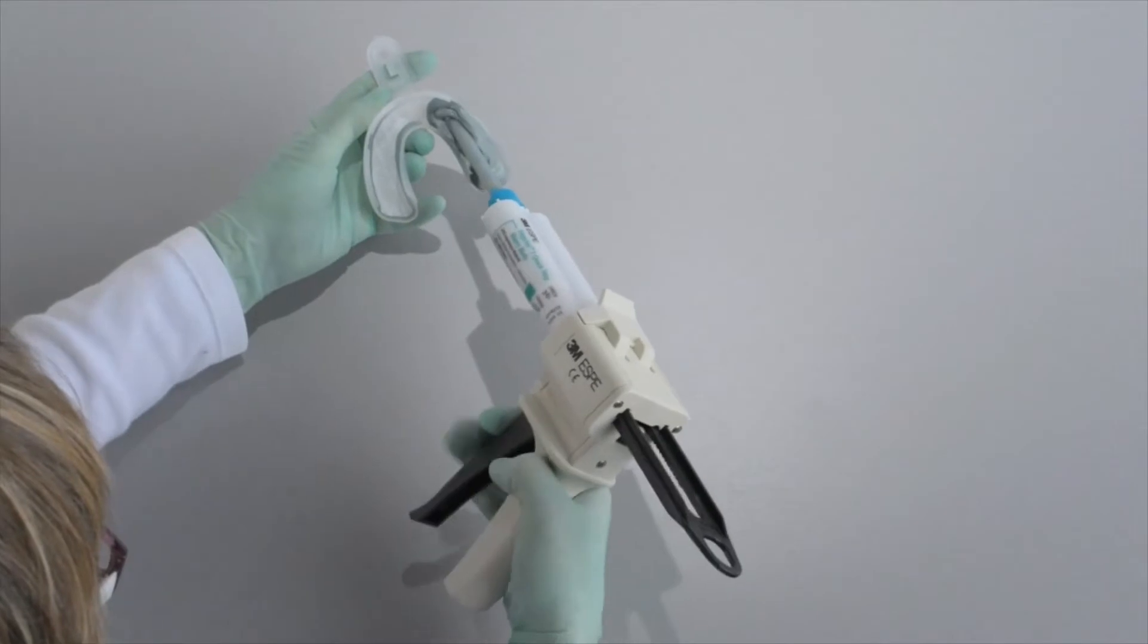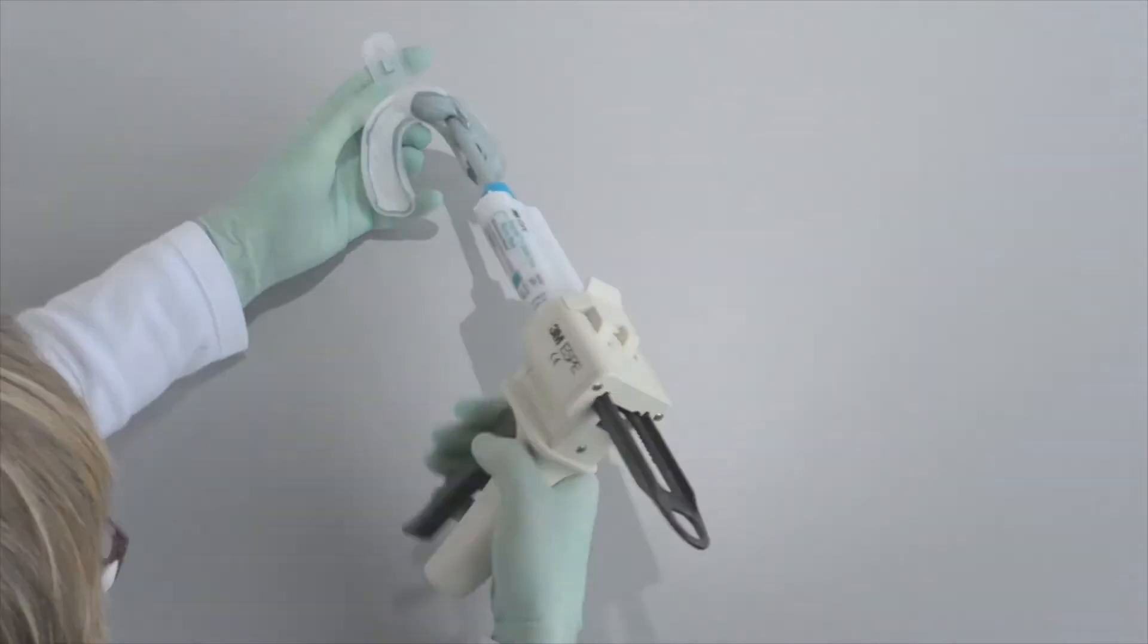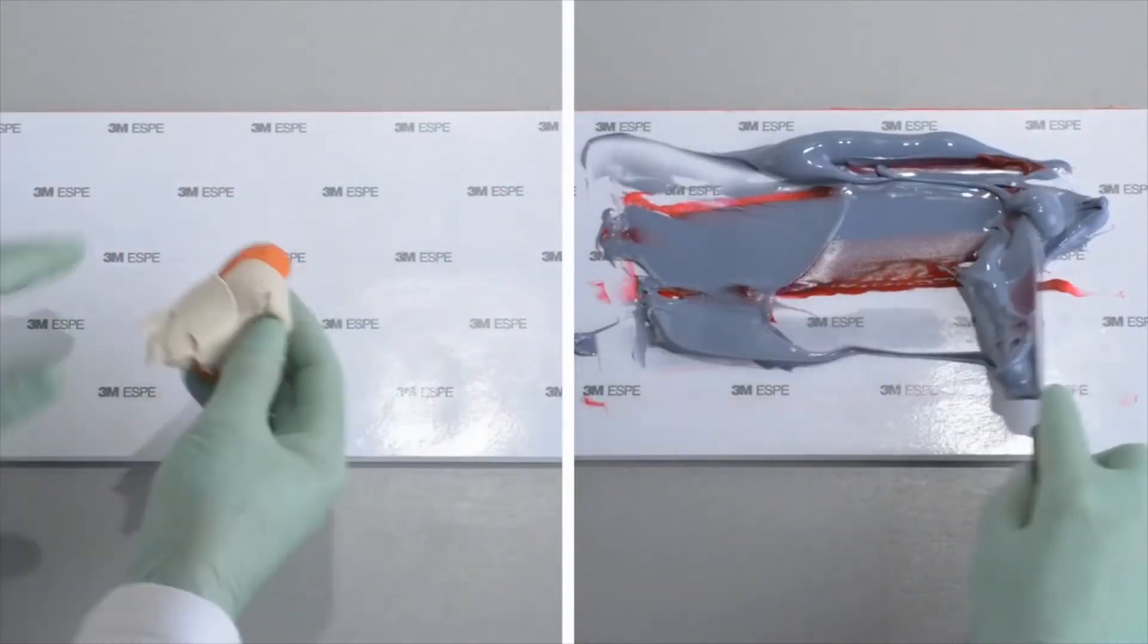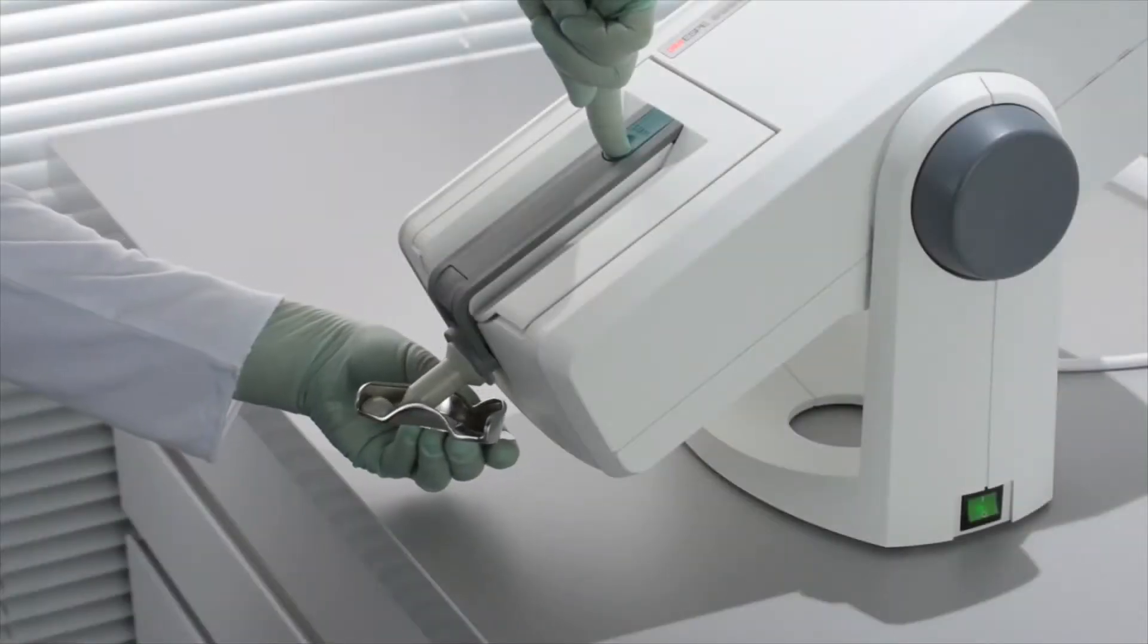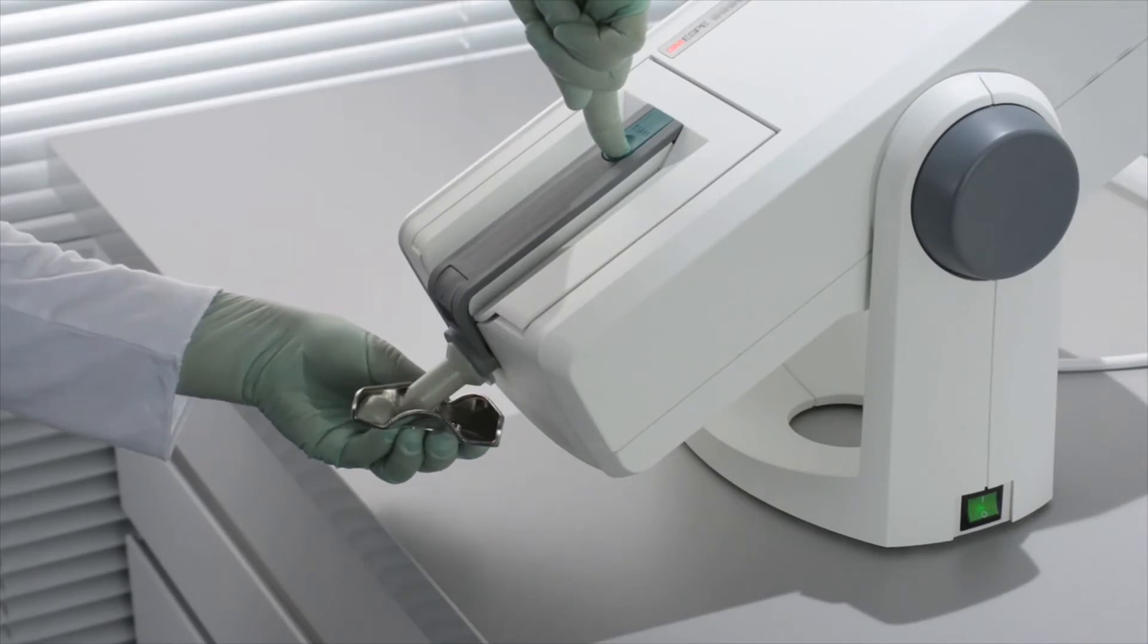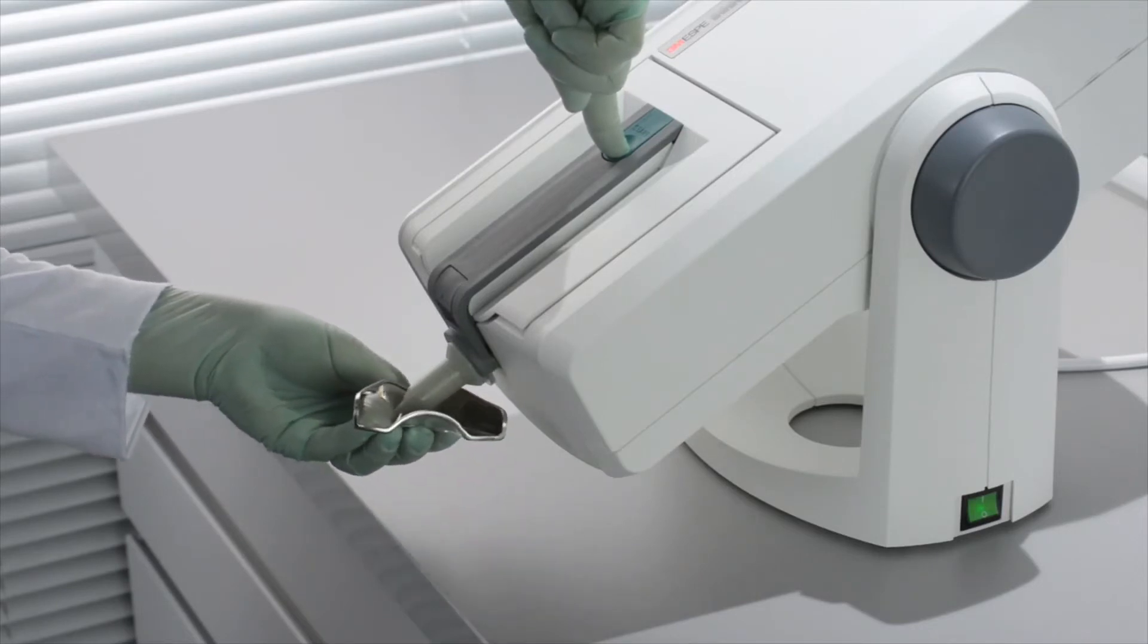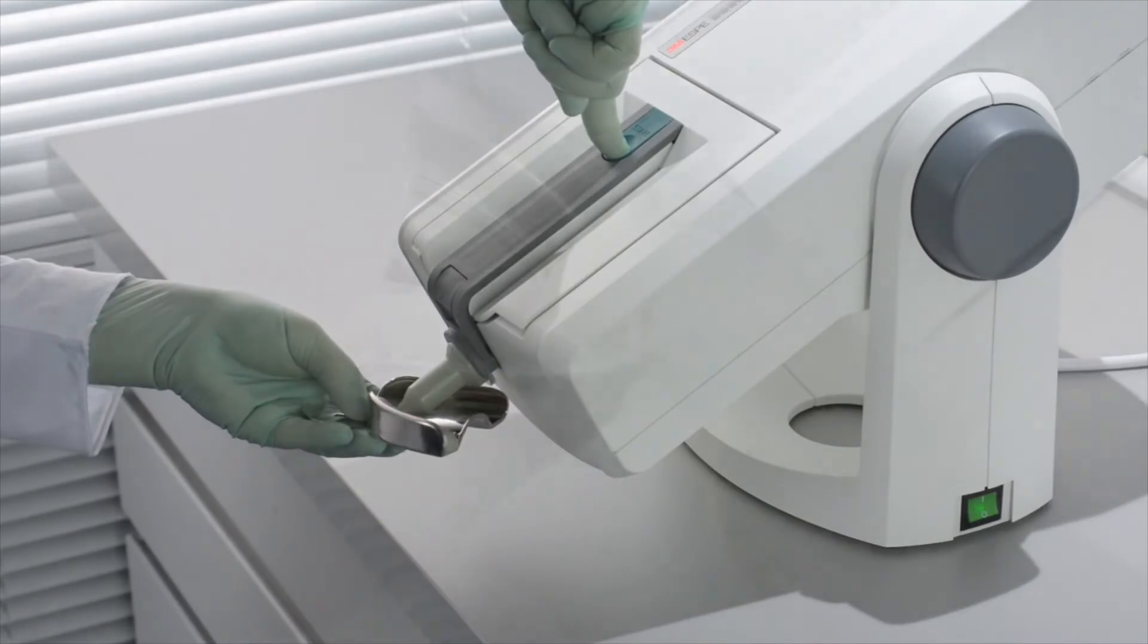Tedious hand pumping with a gun dispenser and time-consuming and messy hand mixing are still very common procedures in dental practices. But dentists who want a more efficient workflow, higher productivity, and better mixing quality compared to hand mixing can have it all with the PentaMix Lite Unit.